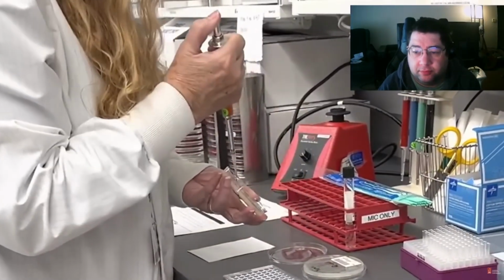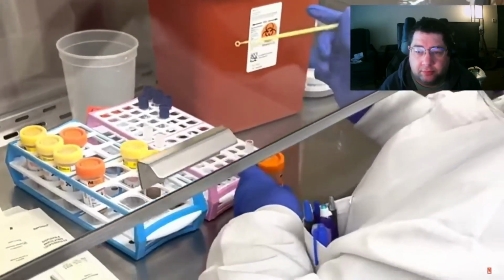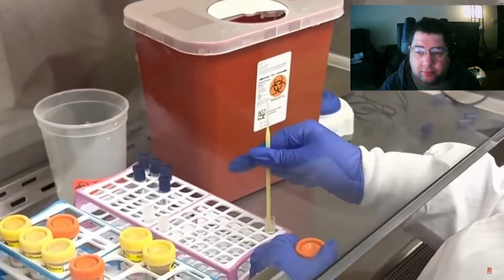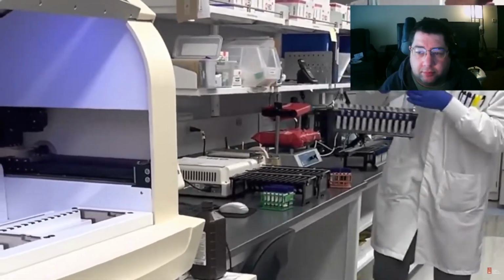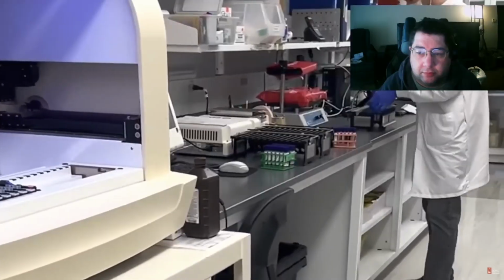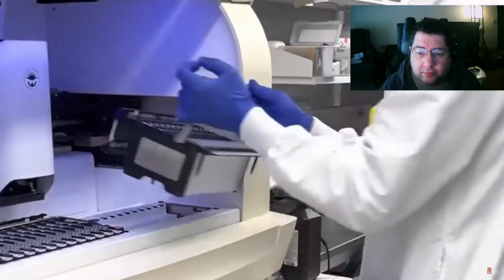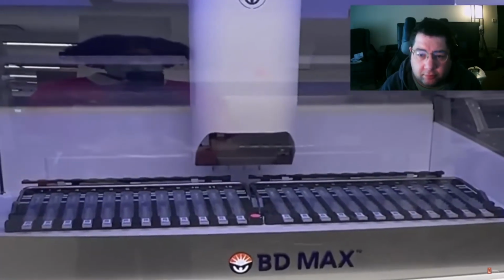to antimicrobial stewardship initiatives. We process stool specimens for the detection of gastrointestinal pathogens using the BD MAX system. This multiplex PCR system can detect and differentiate between viral, bacterial, and parasitic causes of infectious diarrhea. This test allows for rapid diagnosis of infections caused by bacteria including Salmonella, Shigella, and Campylobacter, viruses including norovirus, adenovirus, and astrovirus, and parasites including Giardia, Cryptosporidium, and Entamoeba histolytica.